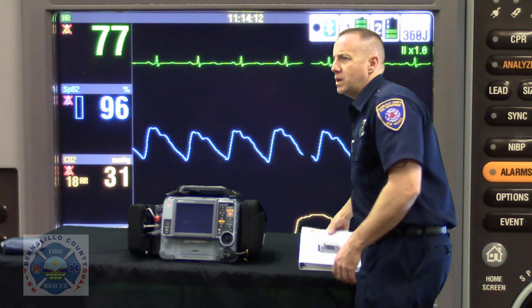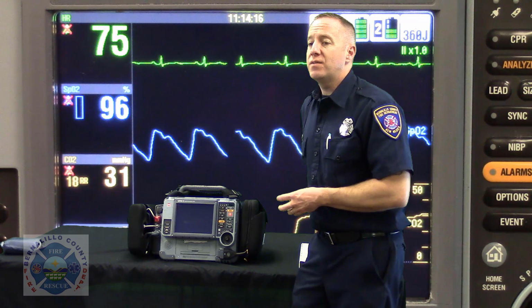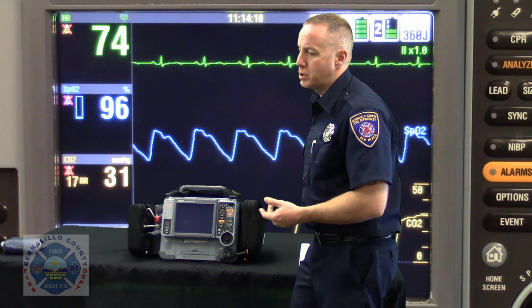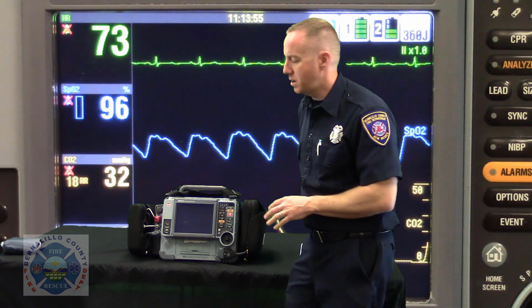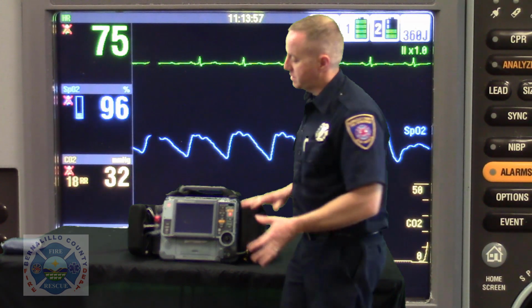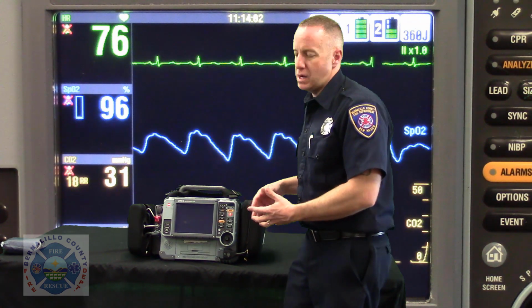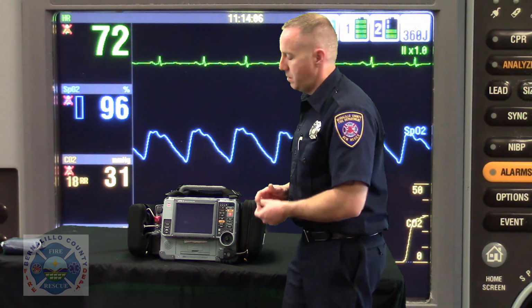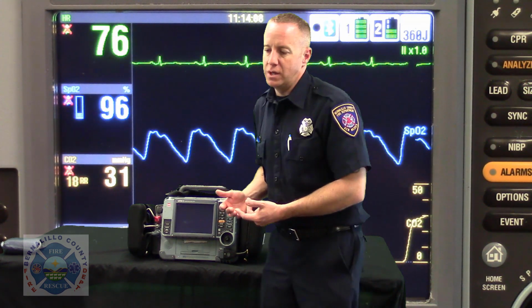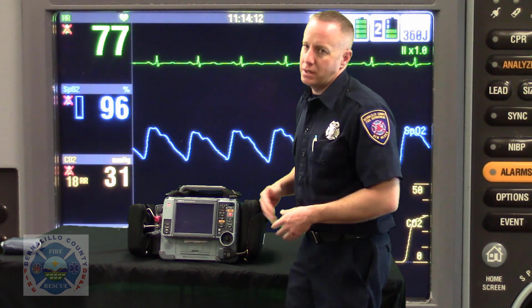Also, I believe we're going to be attaching a link to Physio's training video. It's lengthy, so most people probably won't be interested in watching it from start to finish. It's about 48 minutes long, but it also comprehensively goes over the functionality. If there's something that you have more questions on, the manufacturer's video could probably answer those. But it's like any other manufacturer's video, it can kind of drone on in areas that you're not going to want to sit through.